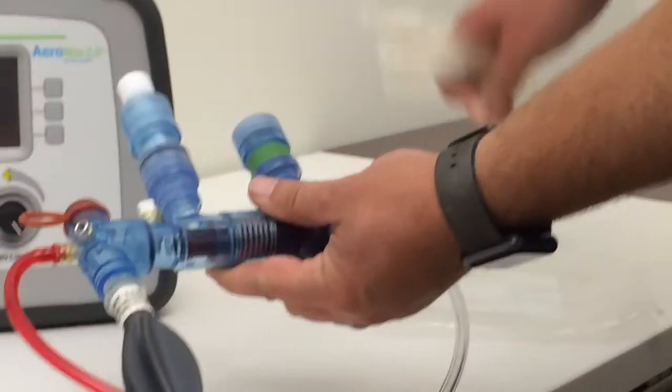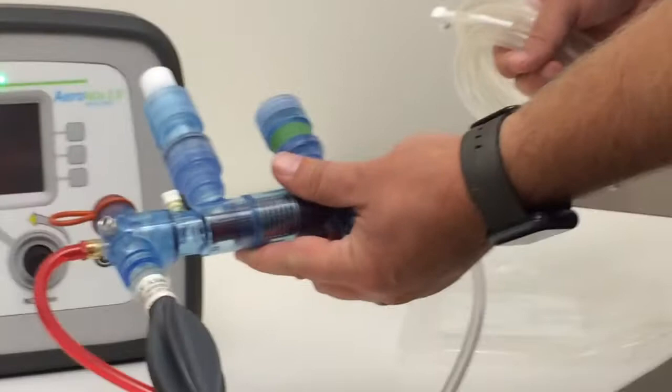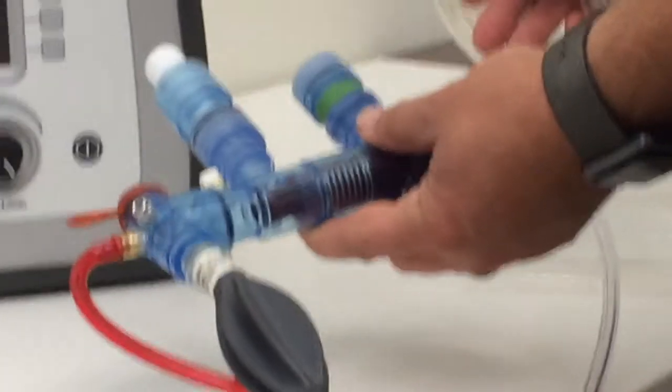Okay, we're going to show you how to hook a patient up now. This is going to be used most of the time with the high-frequency vent.